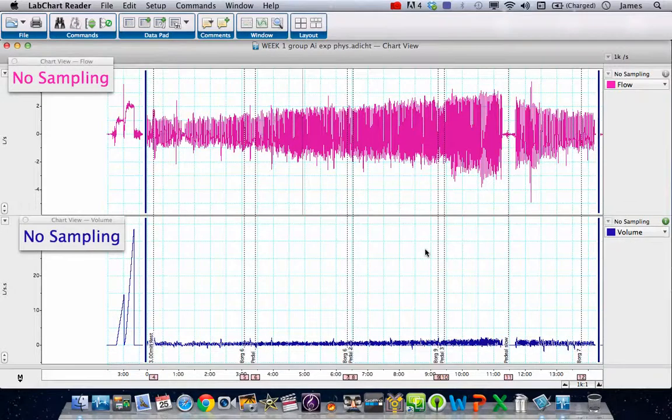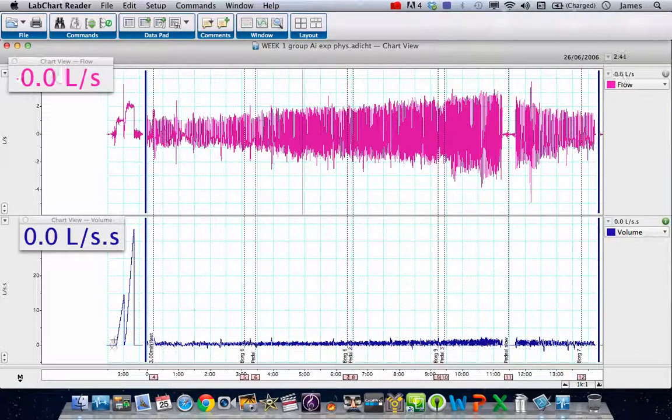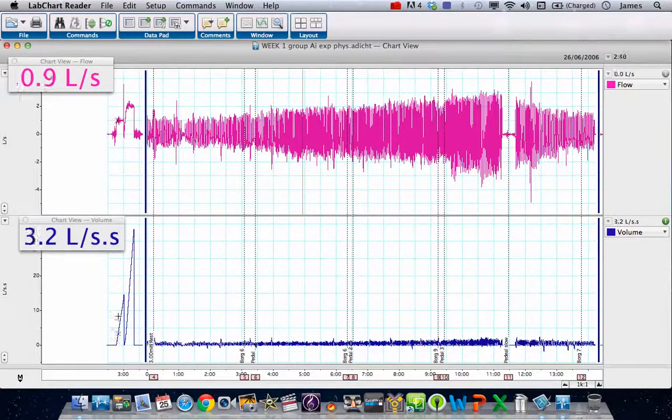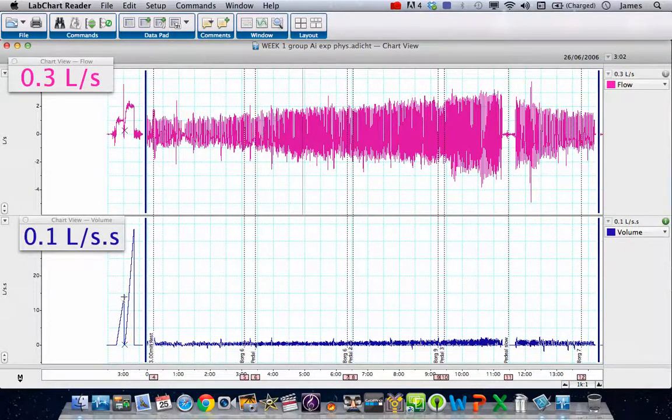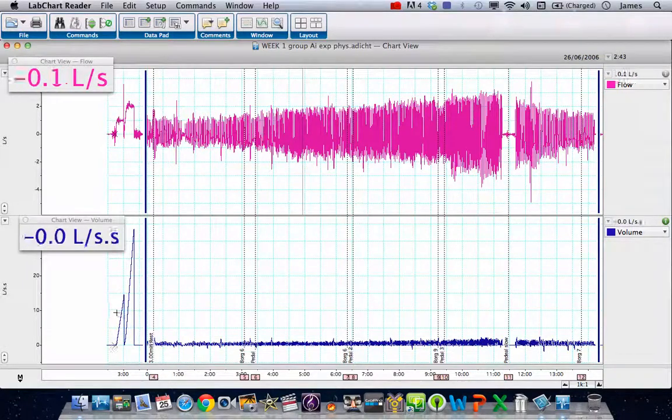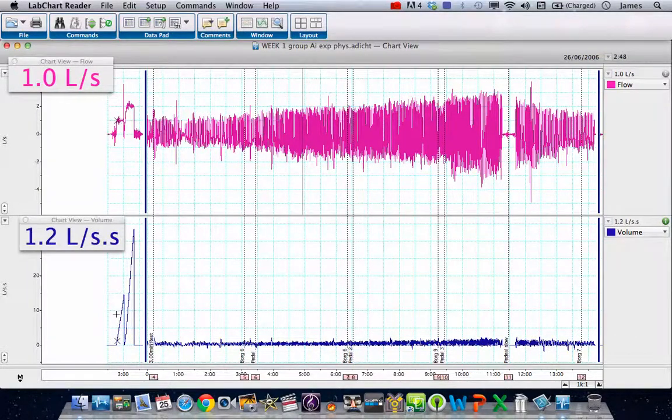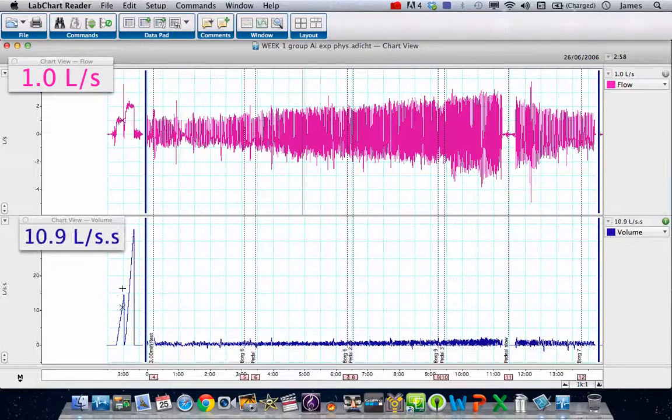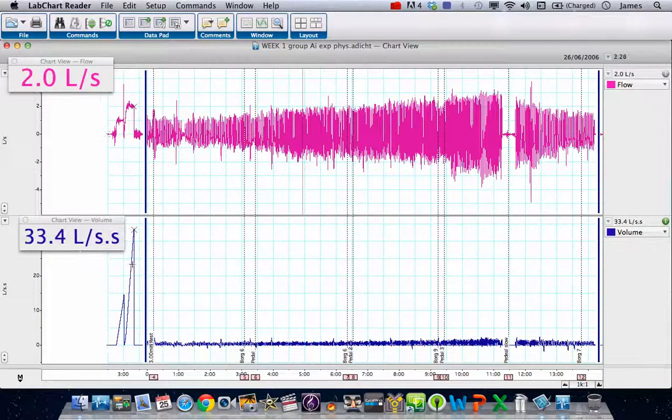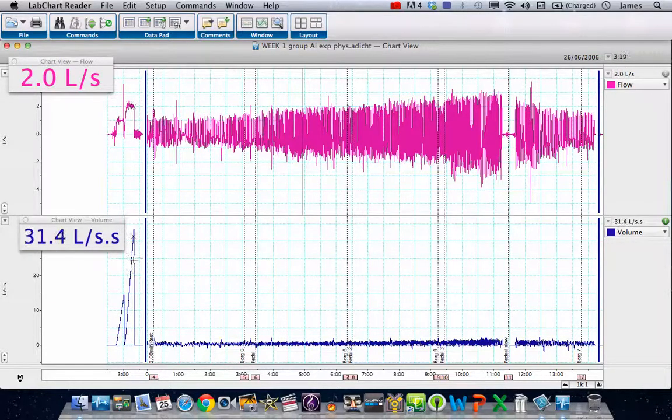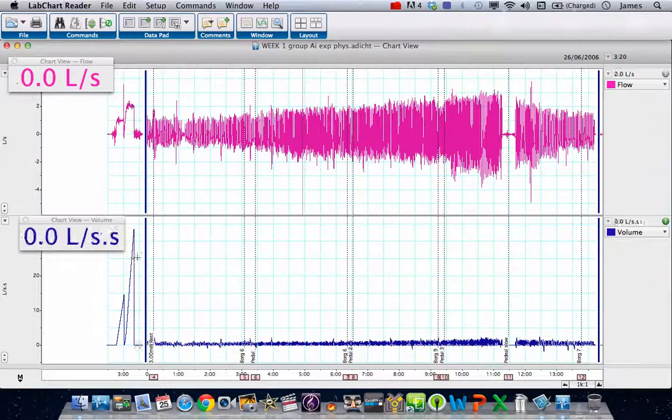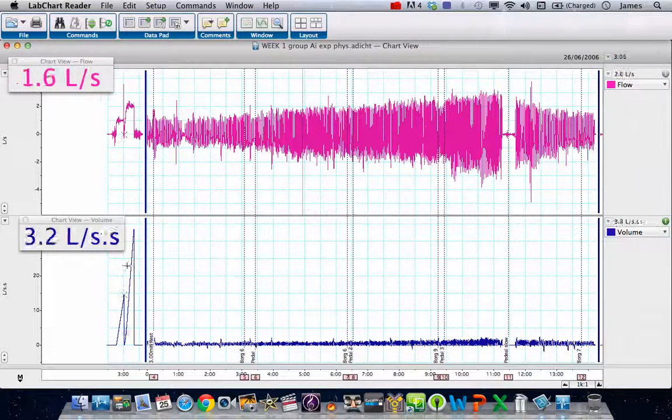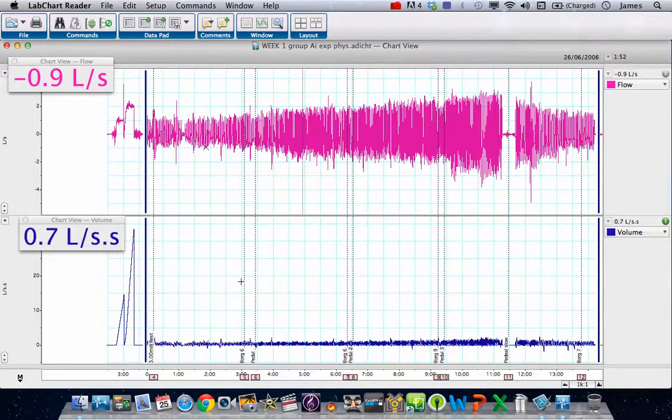What we're expecting is while the vacuum cleaner was running, we should have an ever-increasing amount of volume being moved, and that's brilliant. You can see here while the vacuum cleaner was on at this point with a set flow rate, it was a linear increase in volume. You can see the units here are expressed as liters per second second, which is the same as liters. We don't have the three-liter syringe data here, so I can't show you that it's calibrated correctly, but let's look now at the data.